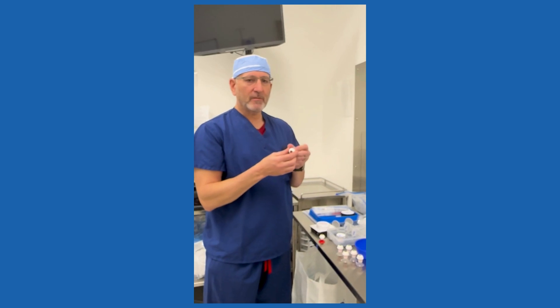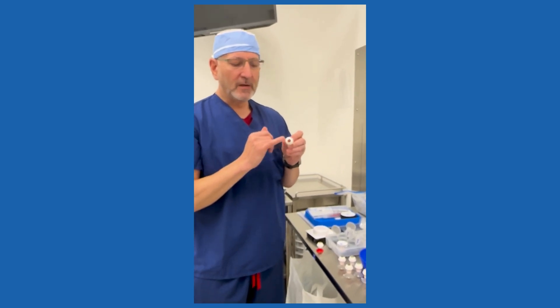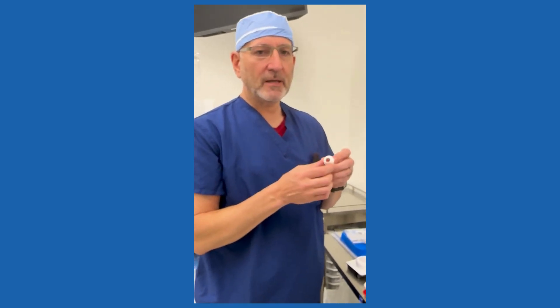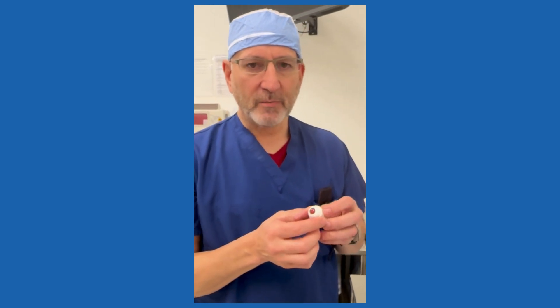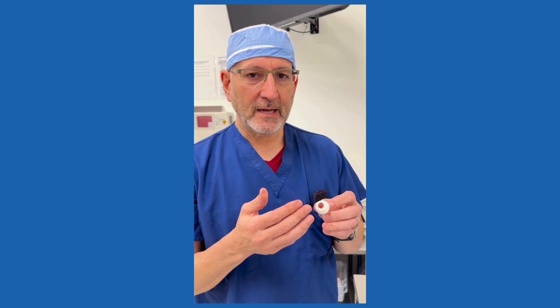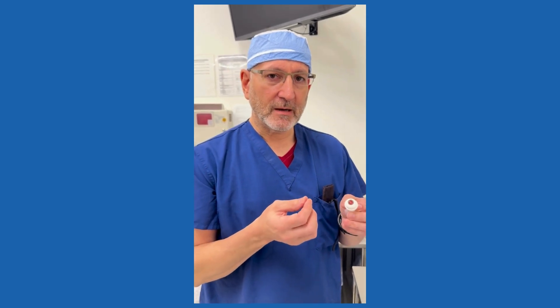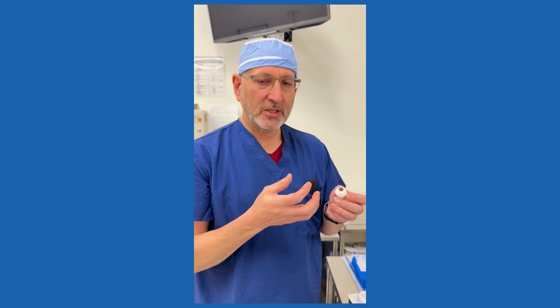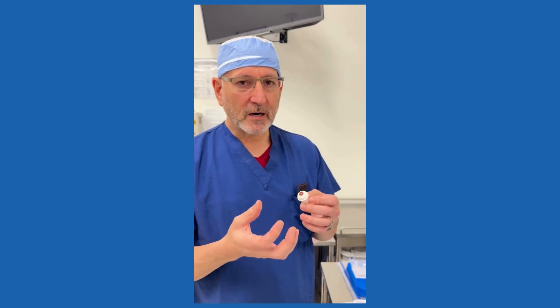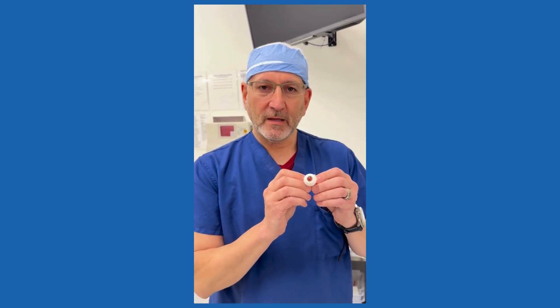You can get anterior and posterior curvatures like tomography and topography. We're developing further for diagnostic devices to link into the OR, and that's going to require some vessel registration which will be coming. This SLE BIO can replace a lot of the other models before because now we get a realistic red reflex, anterior segment visualization, slit lamp exam, binocular indirect ophthalmoscopy, OCT on machines, biometry, topography, tomography — just a lot of uses out of this one eye. This is kind of where everything is going and what the platform will continue to evolve from.